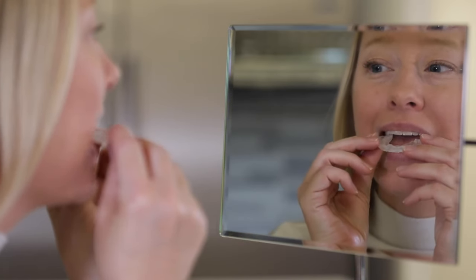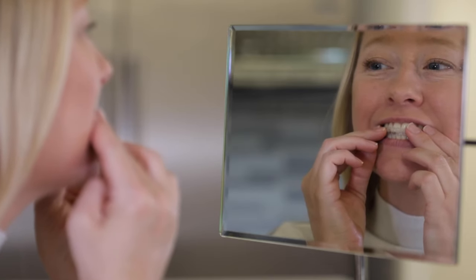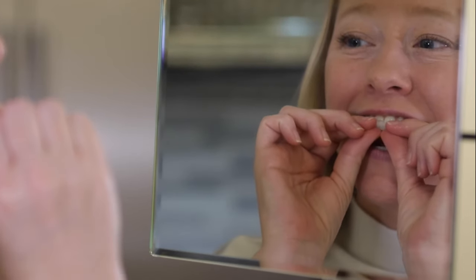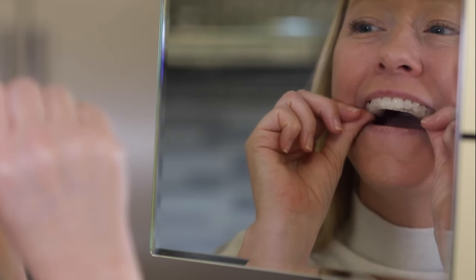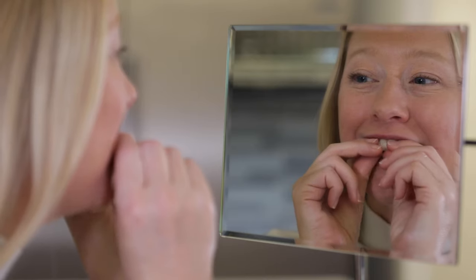While looking closely in a mirror, use two hands to place the dental guard under your upper teeth. Center your two front teeth behind the front stop. Then use your index fingers and thumbs to press and pinch the material on the front and back of every tooth.